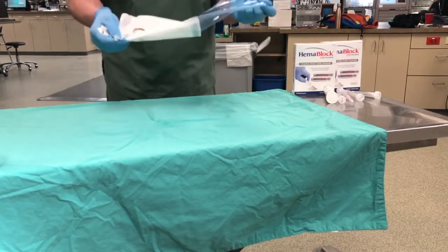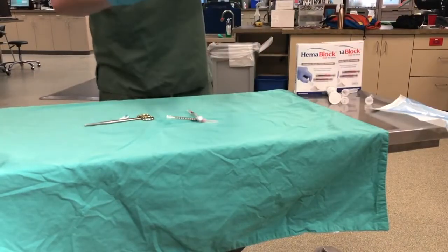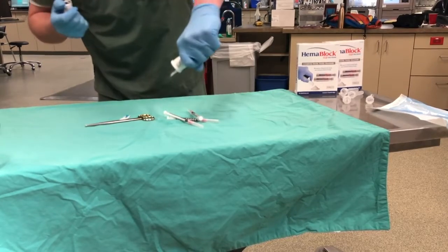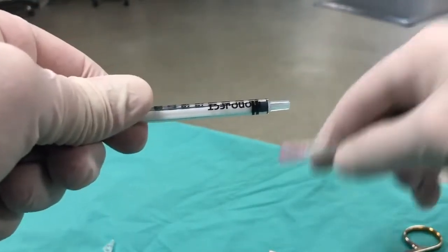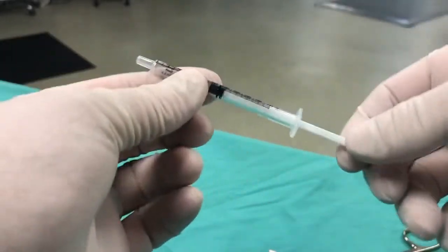The tip I wanted to discuss is making your own sterile pre-loaded syringes using those packets. A sterile 1cc syringe is recommended. Many of these 1cc syringes have a tapered end where the needle hub attaches. Using sterile technique, cut off the tapered syringe tip to create a uniform syringe barrel size.